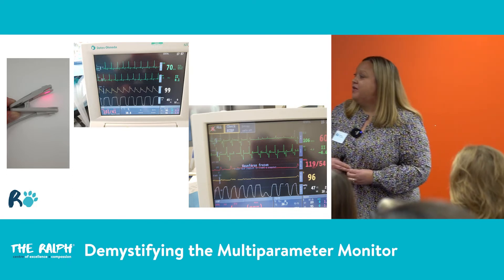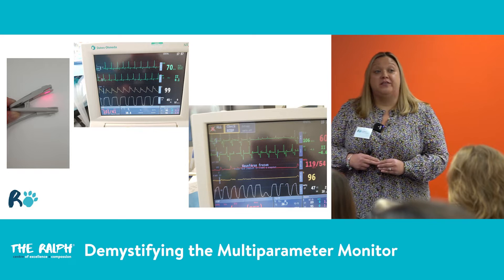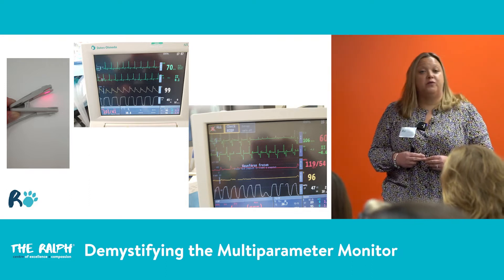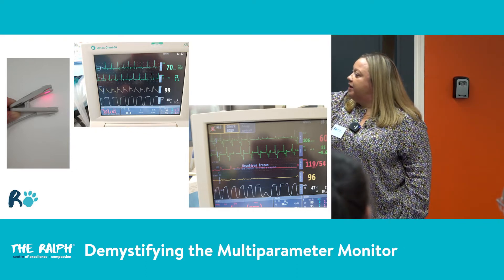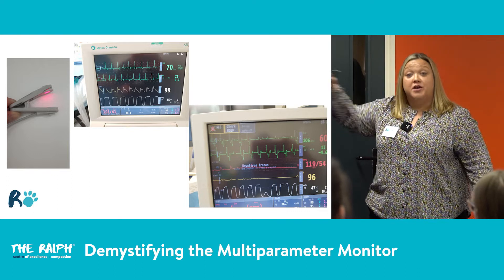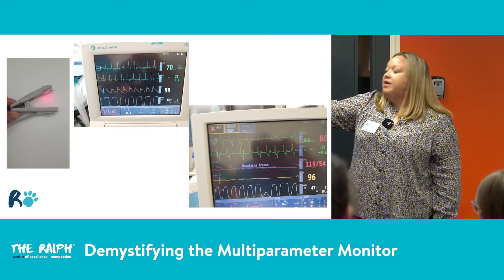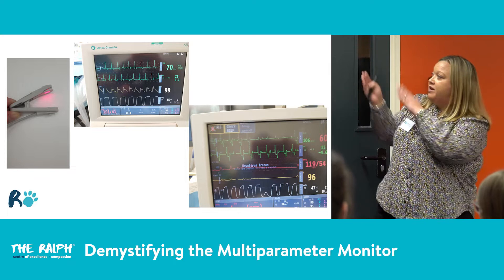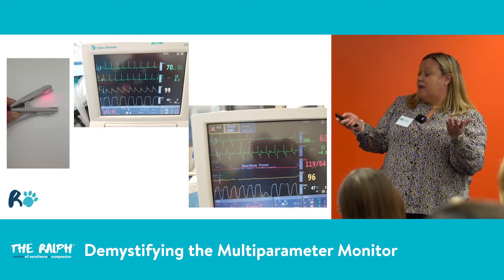That was actually taken during an interventional cardiology procedure where we were disrupting cardiac output intentionally to repair something. You can see the ECG trace has literally gone a bit awful — we've got lots of escape beats. Down here we've got our normal complex and then escape beats. On this side, my arterial blood pressure shows no pulses coming out, so circulation is not great. That then correlates with my pulse pleth not being picked up. You can really see how, when your equipment's working correctly and you understand what's happening, how useful it can be.